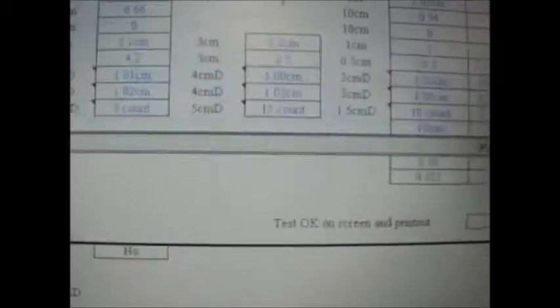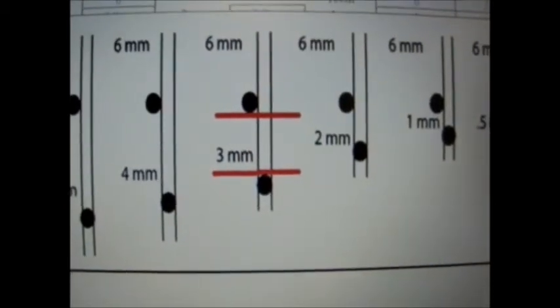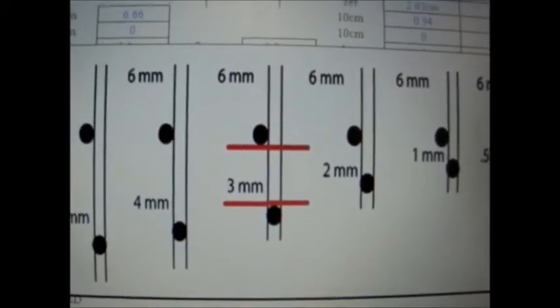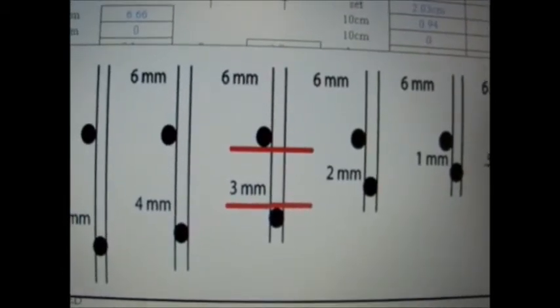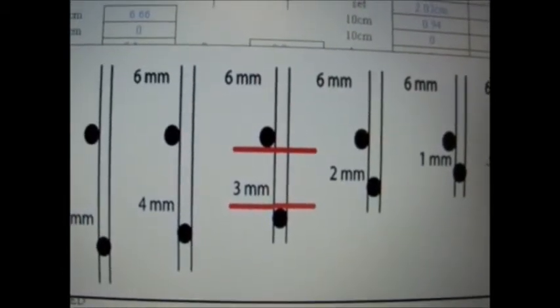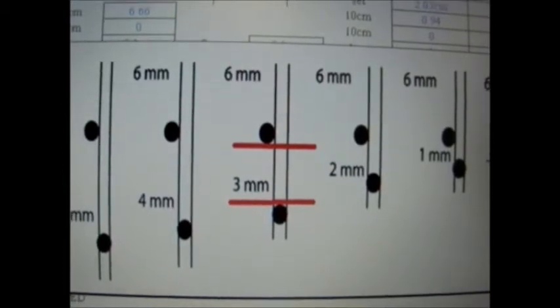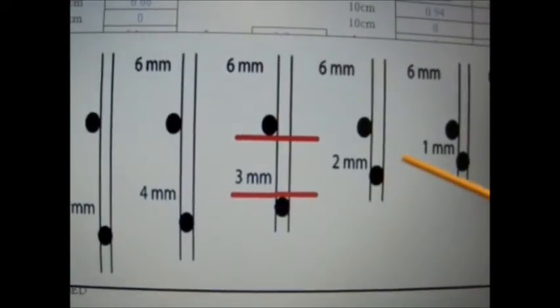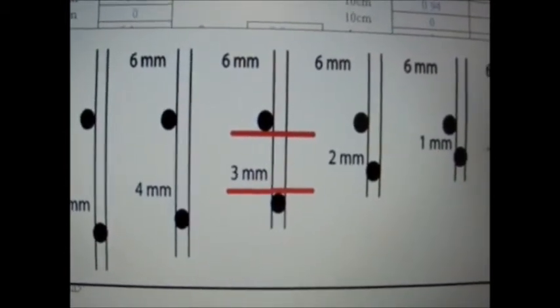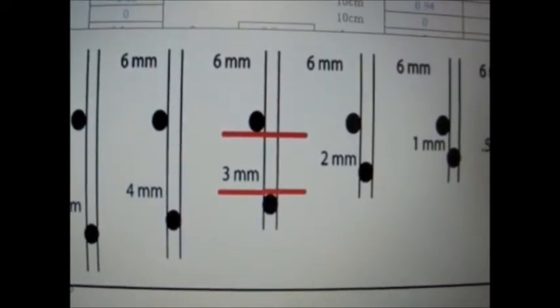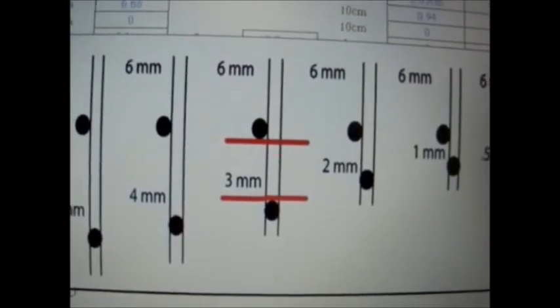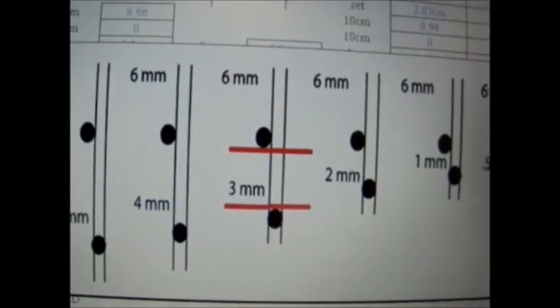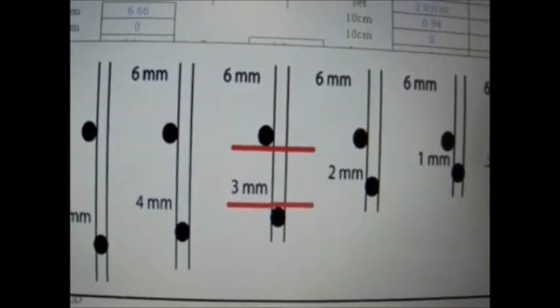Next, vertical resolution. This measures the spacing from the top edge to the bottom edge between vertical reflectors six millimeters apart at multiple distances: at 5mm, 4, 3, 2, 1, and 0.5mm distances.